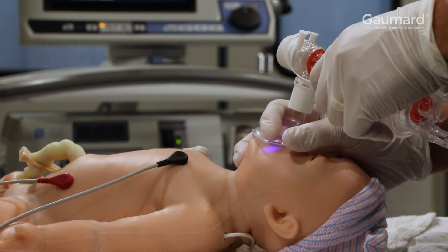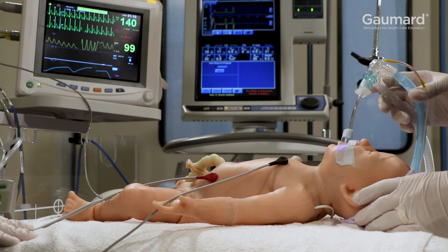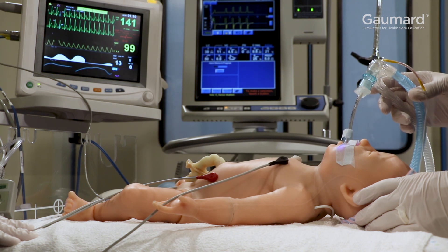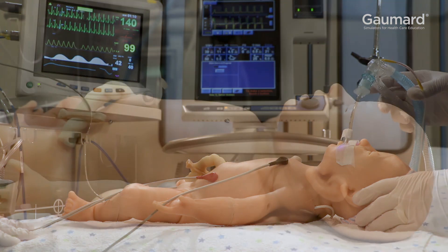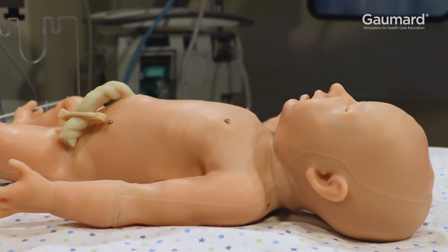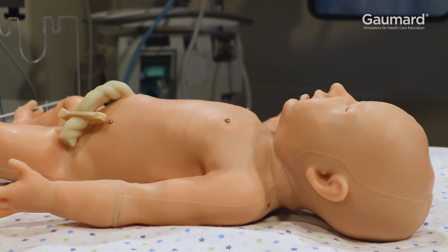SuperTori is the first high fidelity neonatal simulator to work with both manual and mechanical ventilation, responding realistically like a neonate. The lungs are designed to have accurate volume and compliance and replicate the process of inhalation and exhalation exactly like a real neonate.